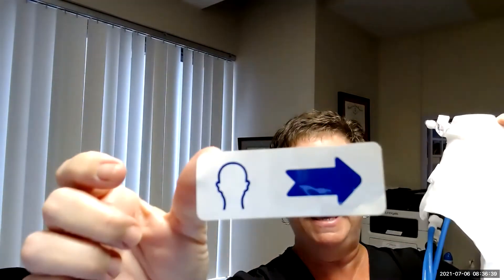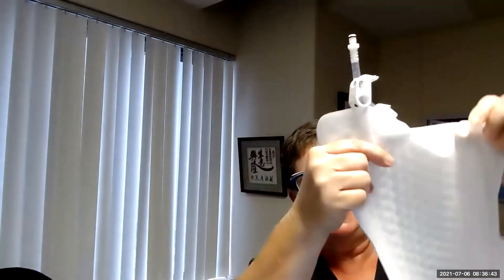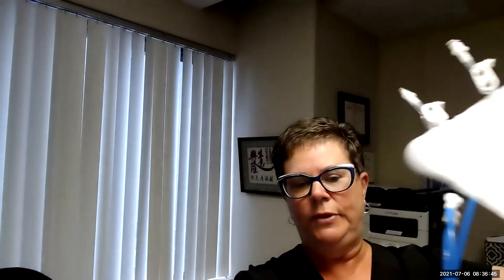You can see that this wrap, which is full of water now, quite heavy, also has a little picture on it that shows where the head is. So this will exit at the top of the bed.